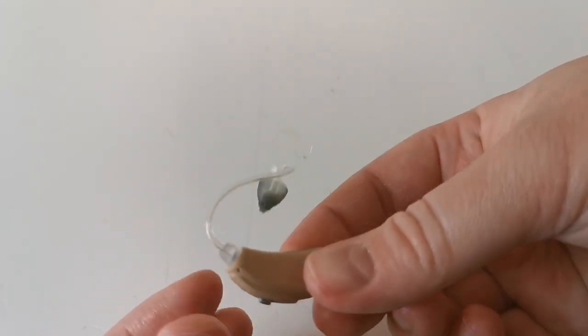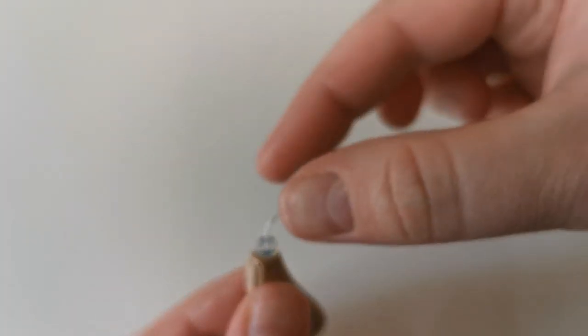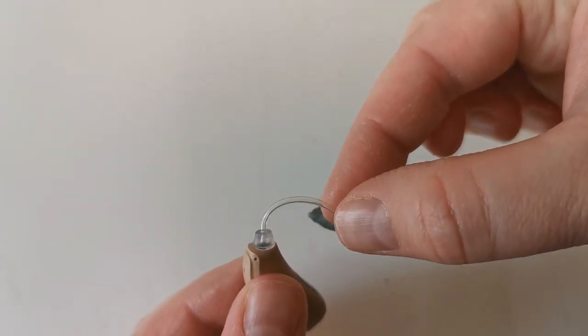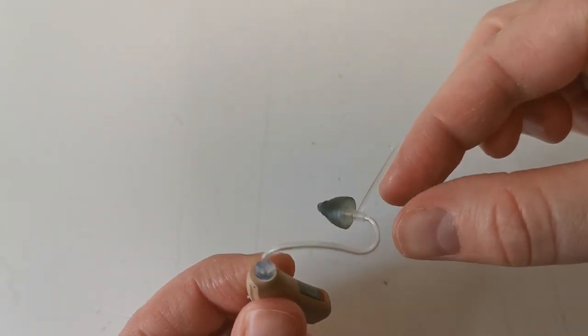The tubing is located here. This carries the sound to your ear.